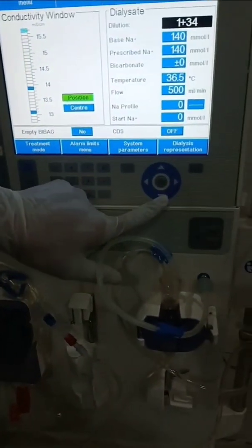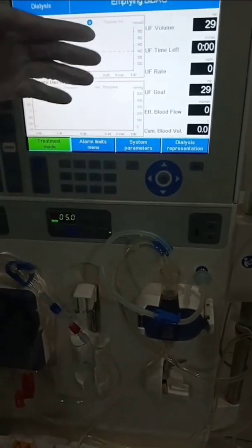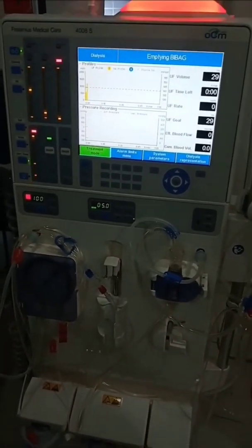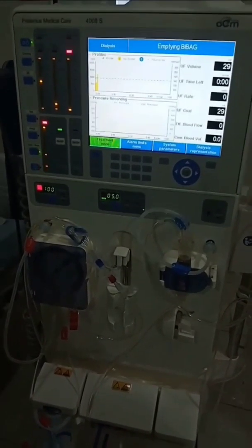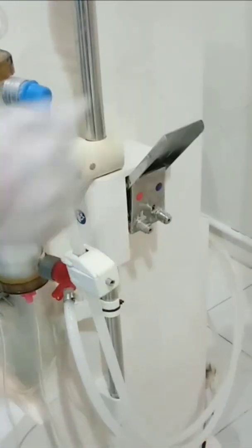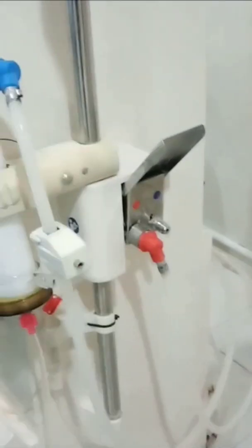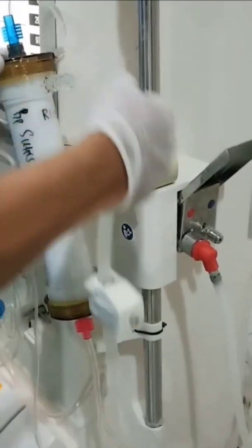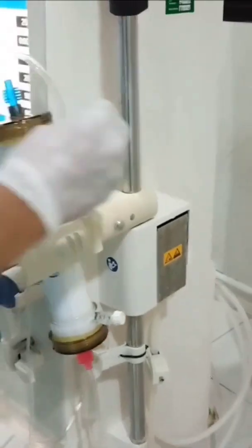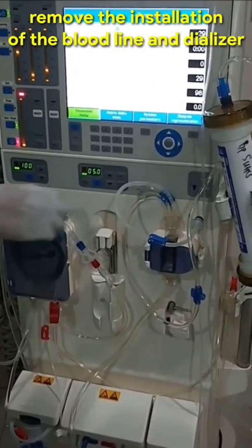On the machine screen it says dialysis end. Press confirm and then empty bag appears. Remove the dialysate connectors from the dialyzer. Put them in their place or shunt cover. Remove the blood line and dialyzer from their place.